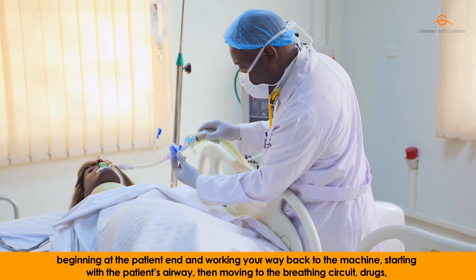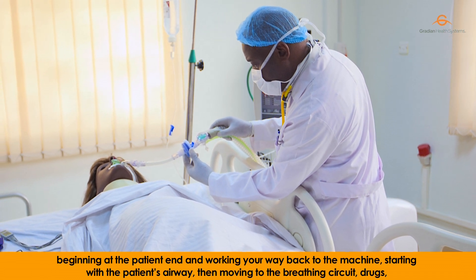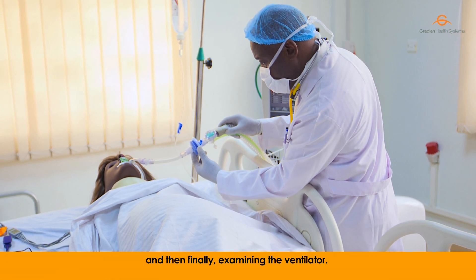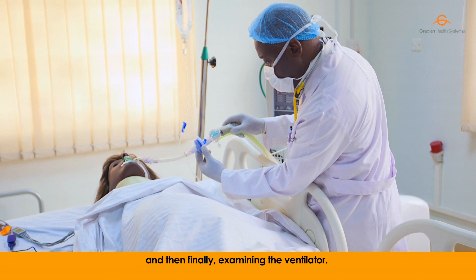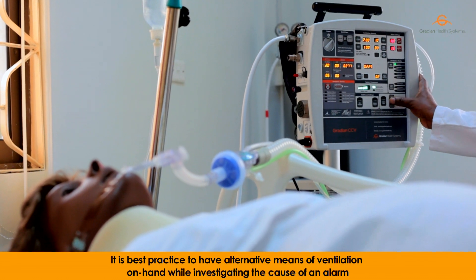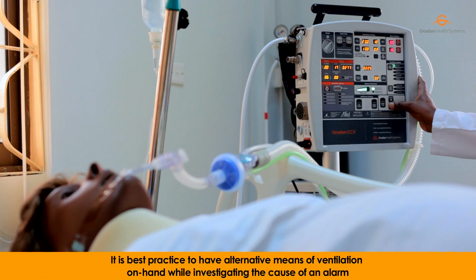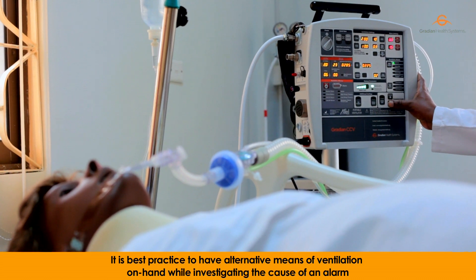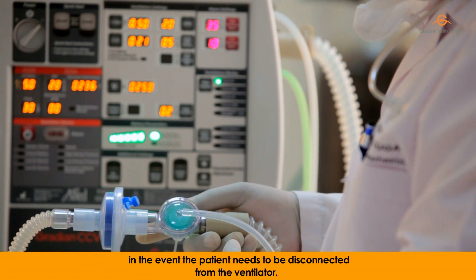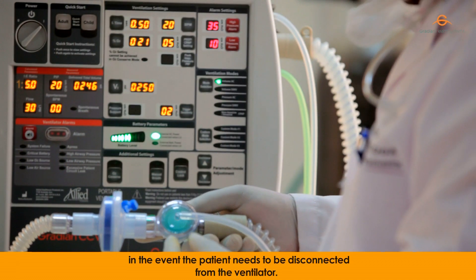Start with the patient's airway, then move to the breathing circuit, then drugs, and finally examine the ventilator. It is best practice to have alternative means of ventilation on hand while investigating the cause of an alarm, in the event the patient needs to be disconnected from the ventilator.